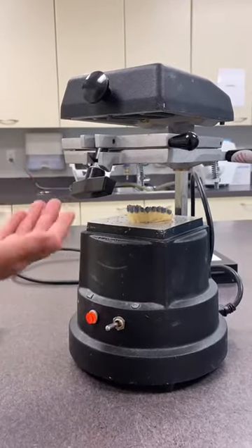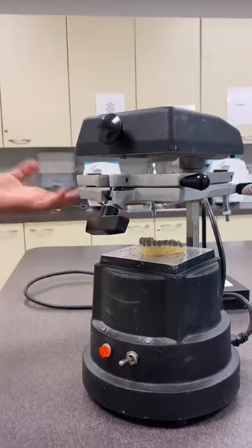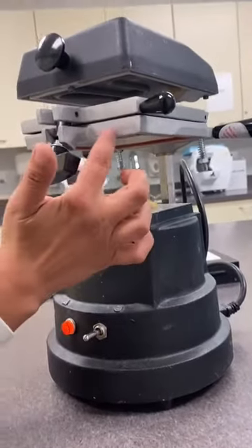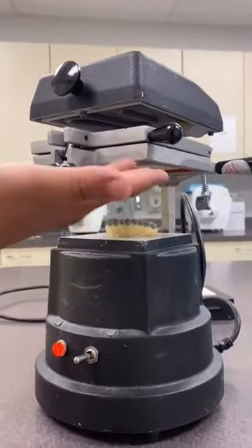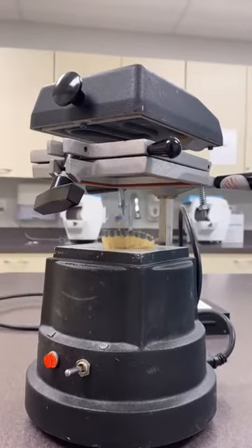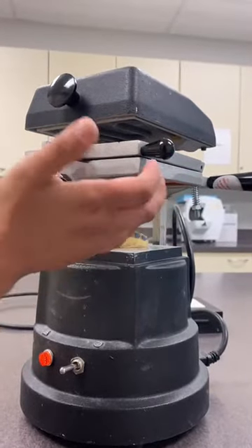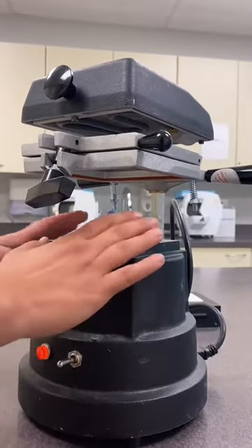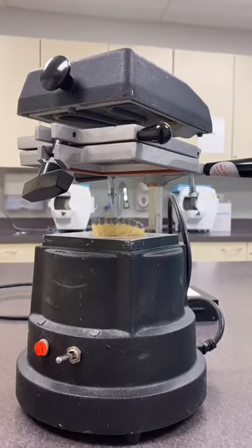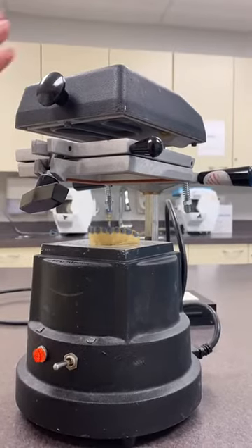Now we have to watch carefully, because as soon as the material starts to melt a little bit, we'll see it start drooping past the frame. Once it droops approximately one to two centimeters, it's ready to be pressed down onto the model. There's a little wait at the beginning, but then it goes really fast, so make sure you stay near the machine and don't walk away.